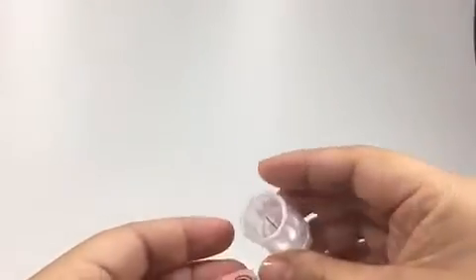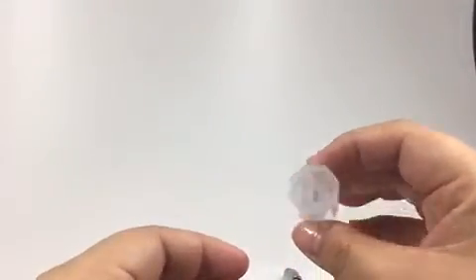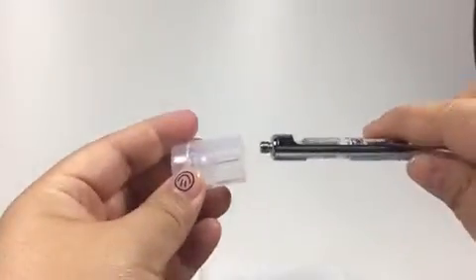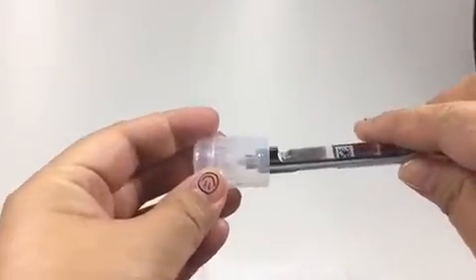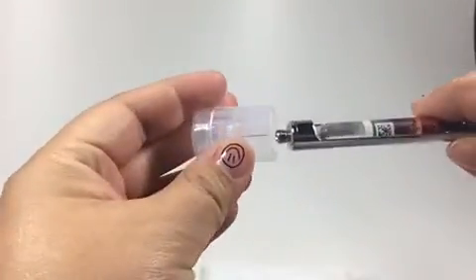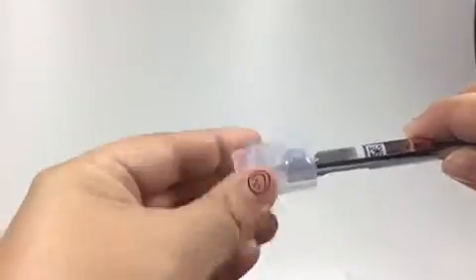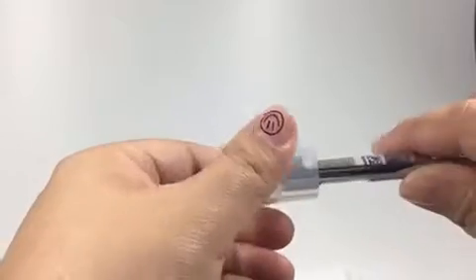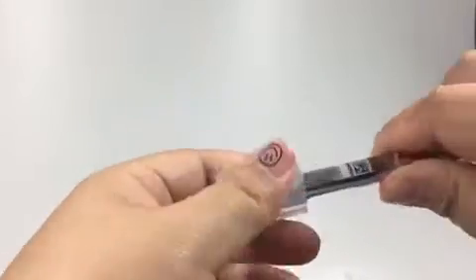I would like to introduce our new dental adapter. You can see a small thread inside, and you can connect directly from the thread of the dental syringes — connect each other by smoothly screwing.